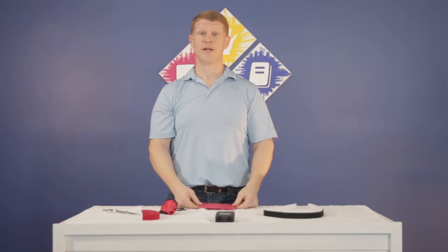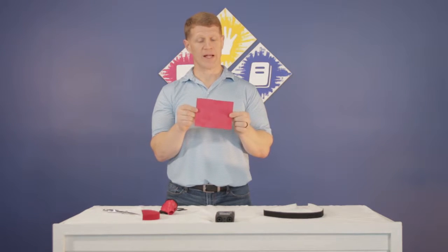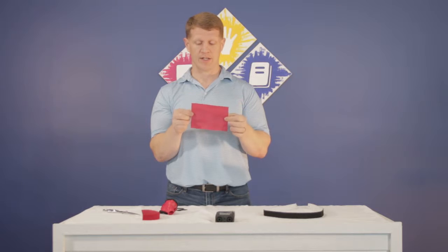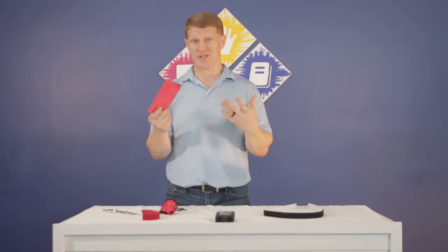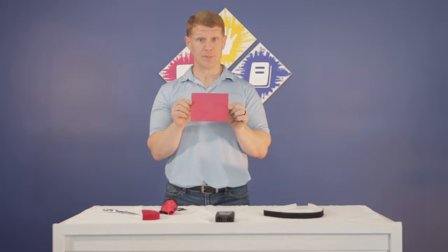Let's take a look at how to use a simple shape and our stretch and tag method to make two versions of the same splint. For our first version, I'm going to take a simple rectangle of material. I'm using 1/16th Aquaplast — the ultra perf at 13%. No brand affiliations, that's just material I like using. It tags to itself really well and separates without getting permanently stuck.